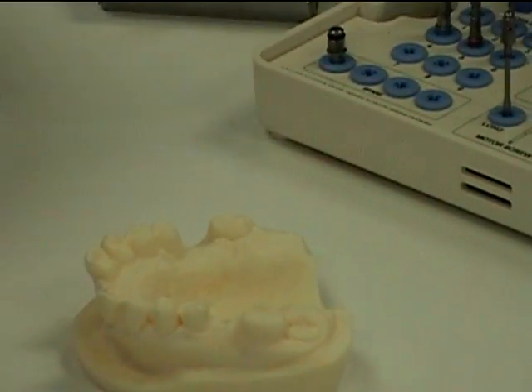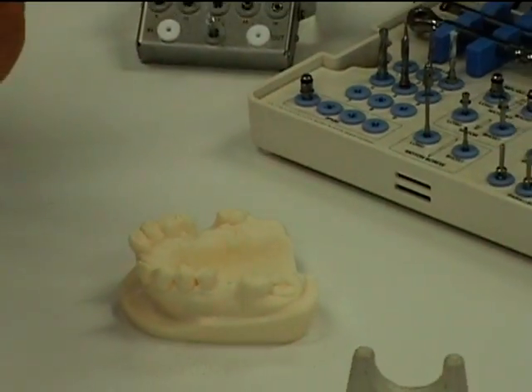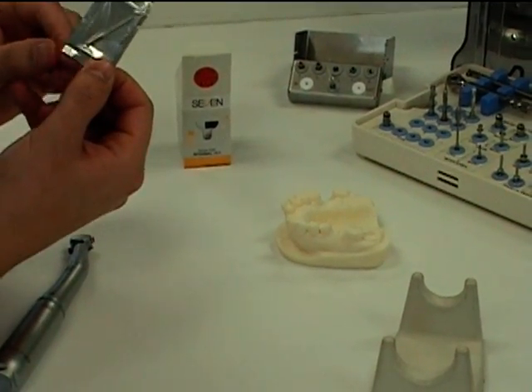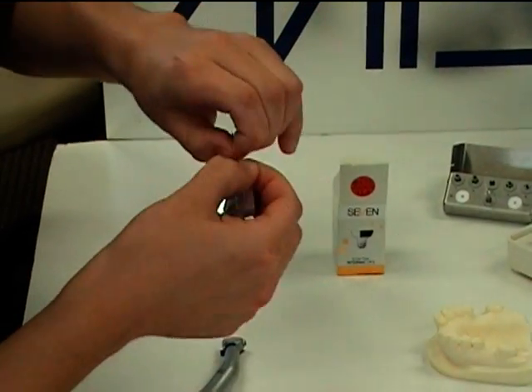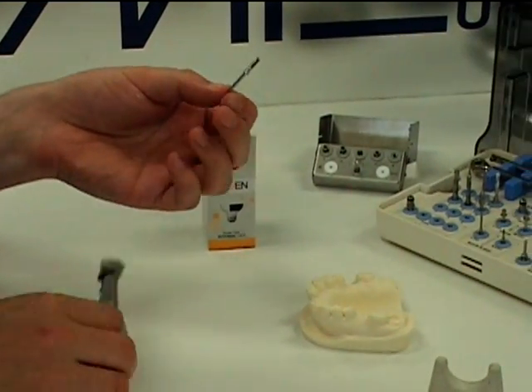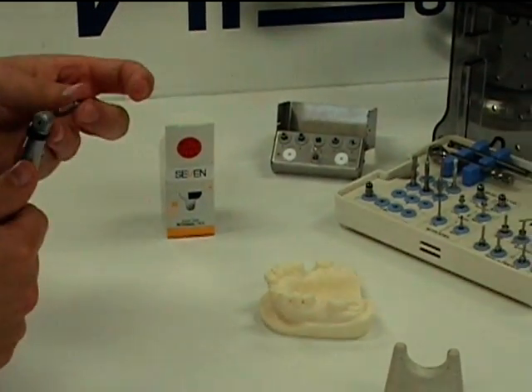And finally, the drill included with the MIS-7 implant, single-sealed, sterile, final drill, designed for the exact specifications of the implant itself.